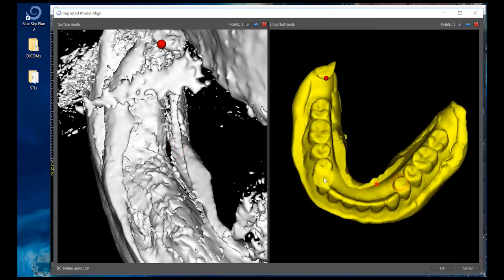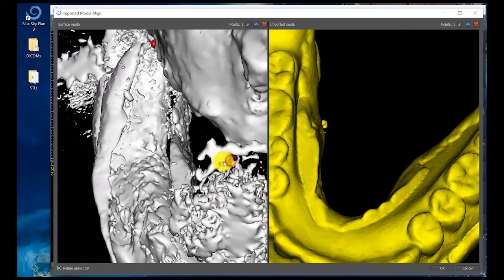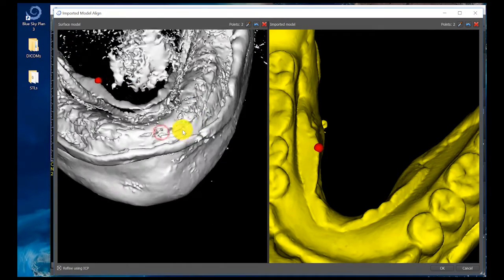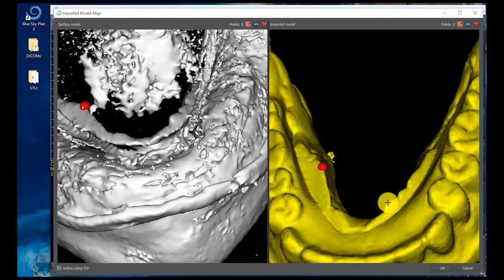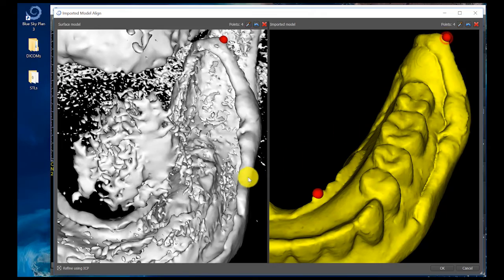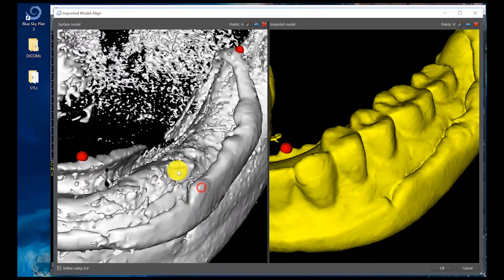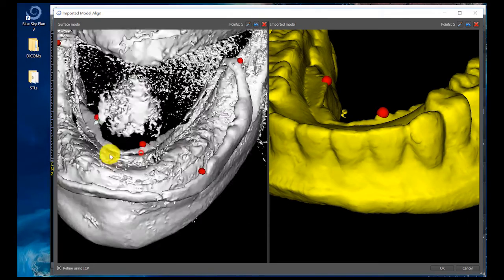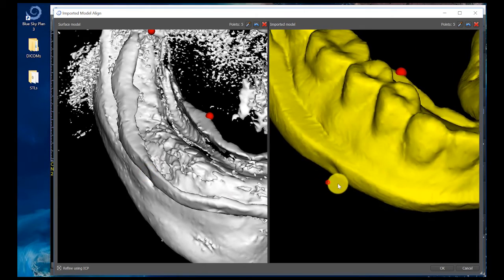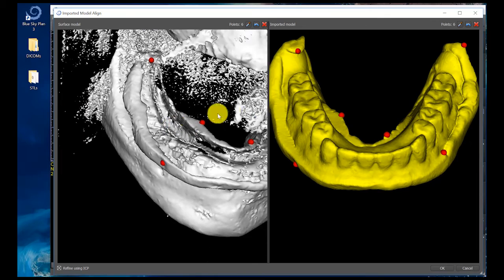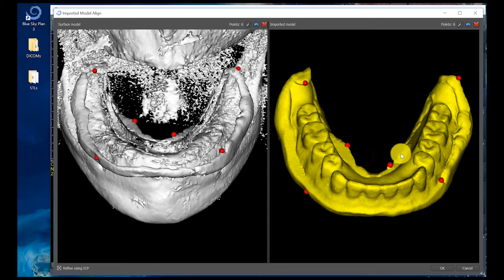On the lingual surface, I can see a little bump that corresponds across both scans. Looking at the lingual portion on the opposite side of the arch, there's another bump that corresponds. I click the matching points on each side. Working across to the other retromolar pad, there's a bump here and a bump here. On the anterior portion, there's a nice little V bump — it helps to have markers here to make sure the stitching is done correctly. Once I've picked up about four to six markers corresponding on each side, I click the OK button.